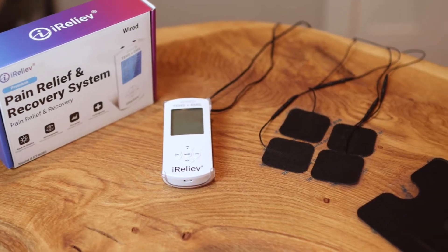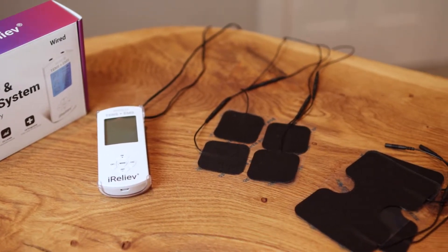Hey guys, it's Tim with PT Progress, and today I'm going to show you how to use a TENS unit for pain relief and share my opinion as a physical therapist about this unit right here, a TENS and EMS unit from iReliev.